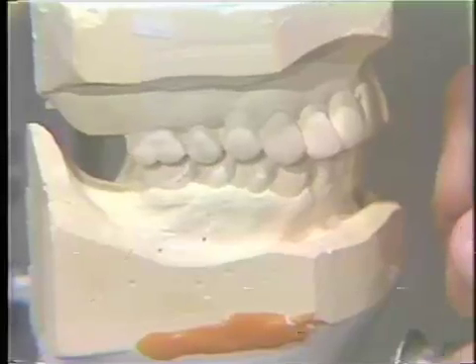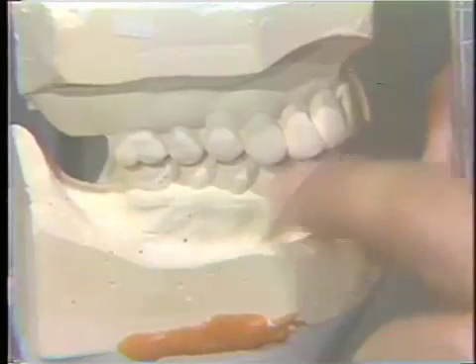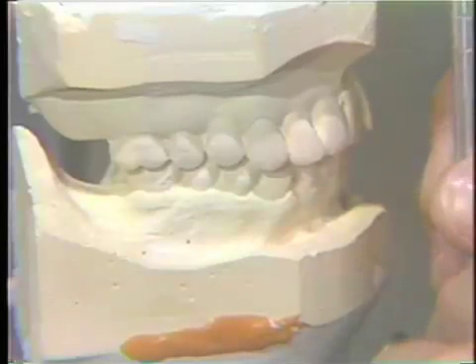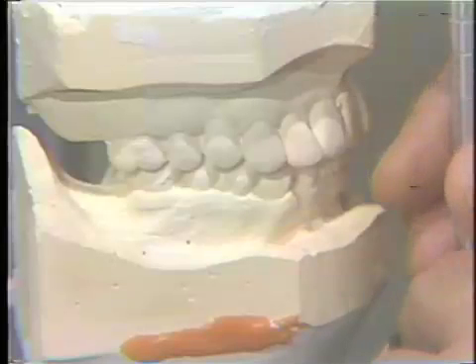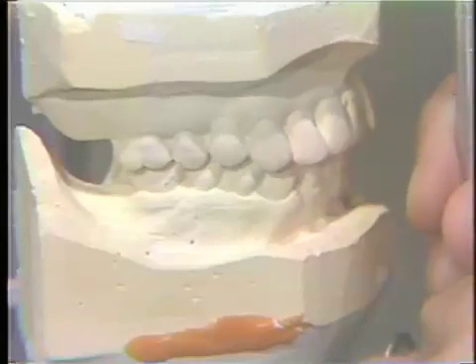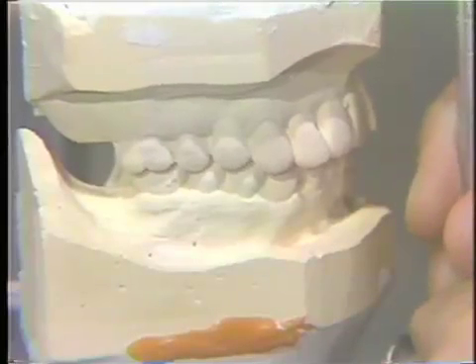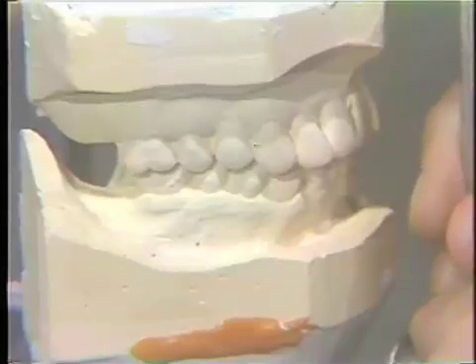Hopefully, with an occlusal adjustment and restoring good posterior contact and some adjustment of the anterior teeth, which would be necessary in this case, we would get a stable occlusion for the centric position. After adjustment of the centric relation to centric occlusion range, we will probably end up with a long and broad centric, properly termed freedom in centric.